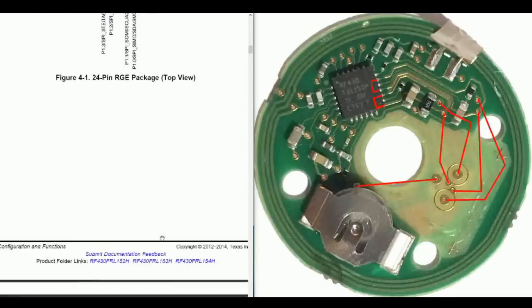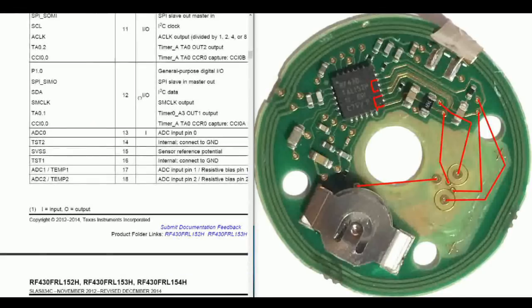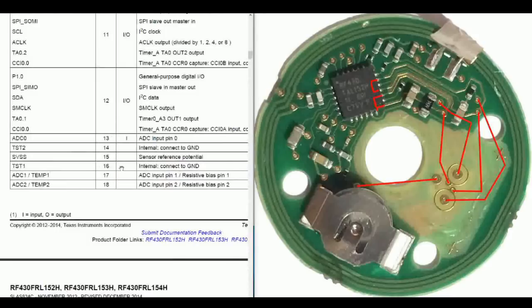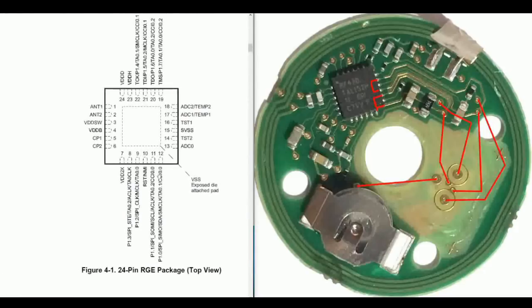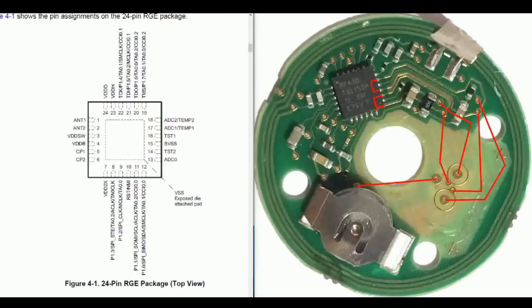The next page describes what each pin does, and TST is supposed to be an internal connect-to-ground pin, so I'm not sure what they're doing there. It also connects through a capacitor to pin 11, so possibly some sort of coupling through a capacitor. I'm not sure how they're reading or providing from that pin.